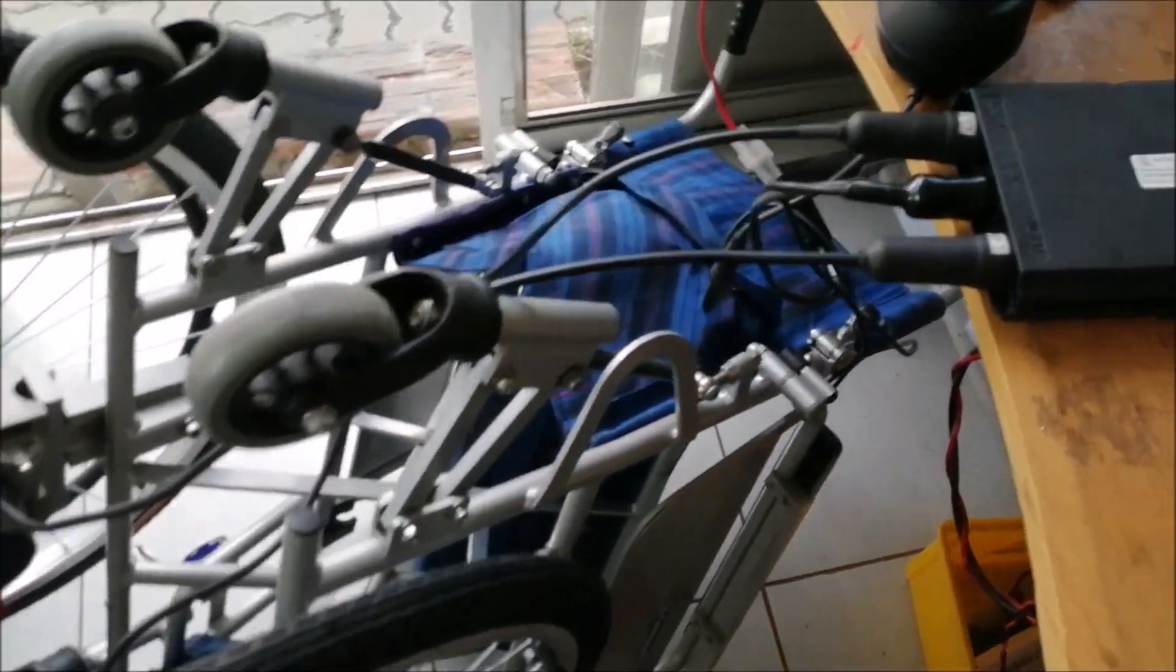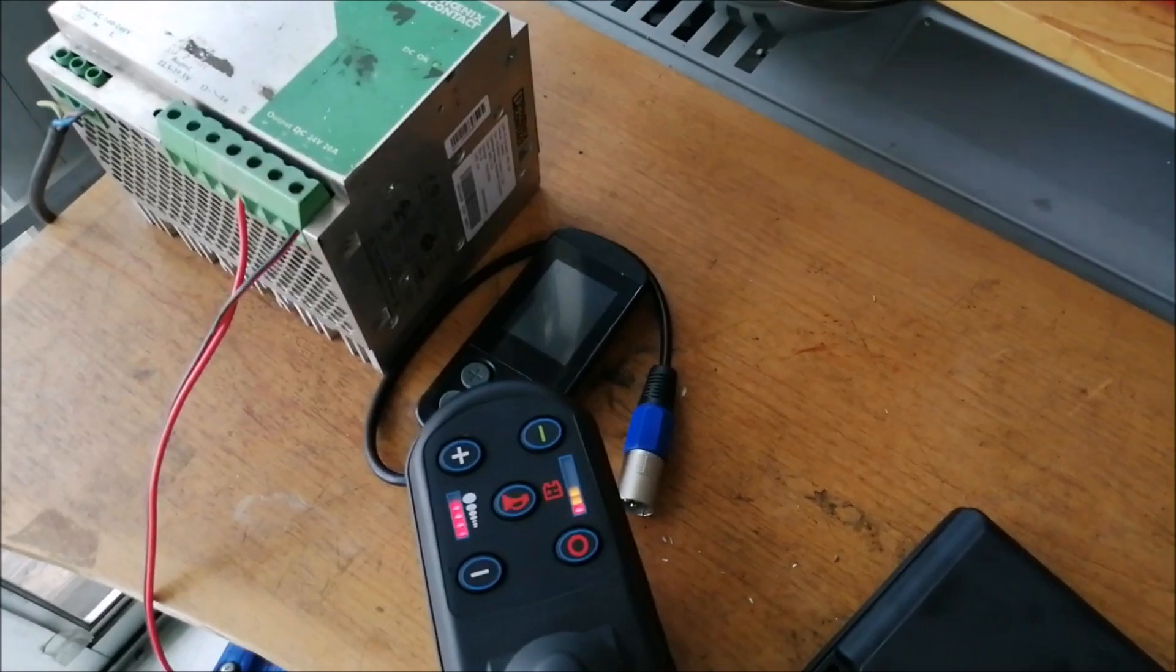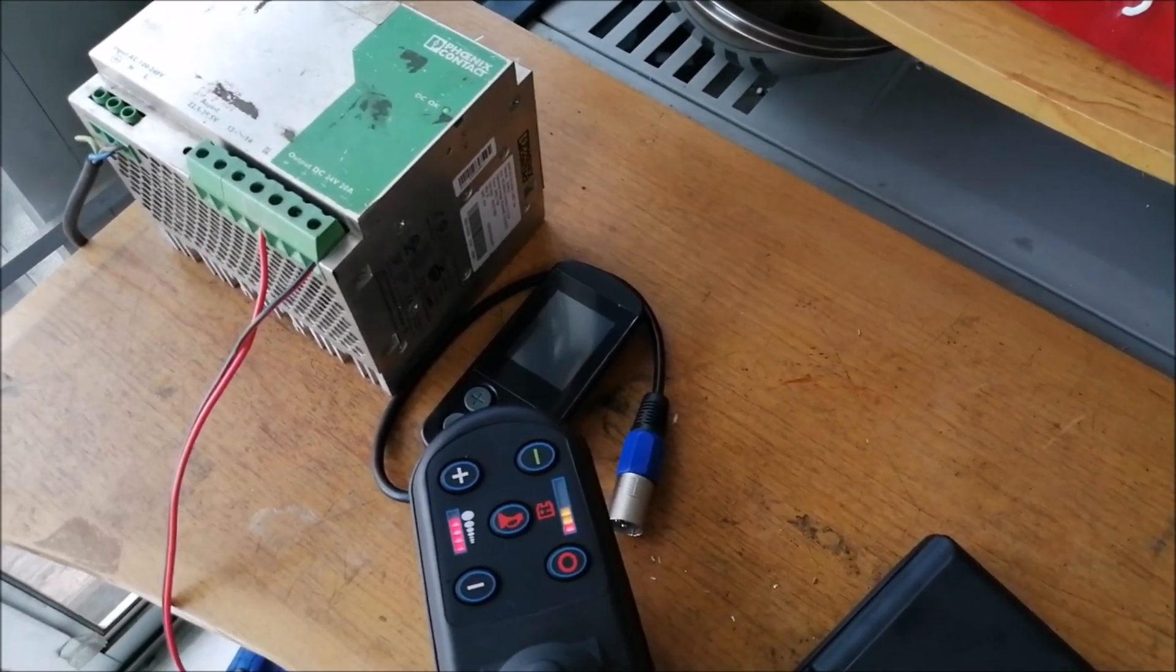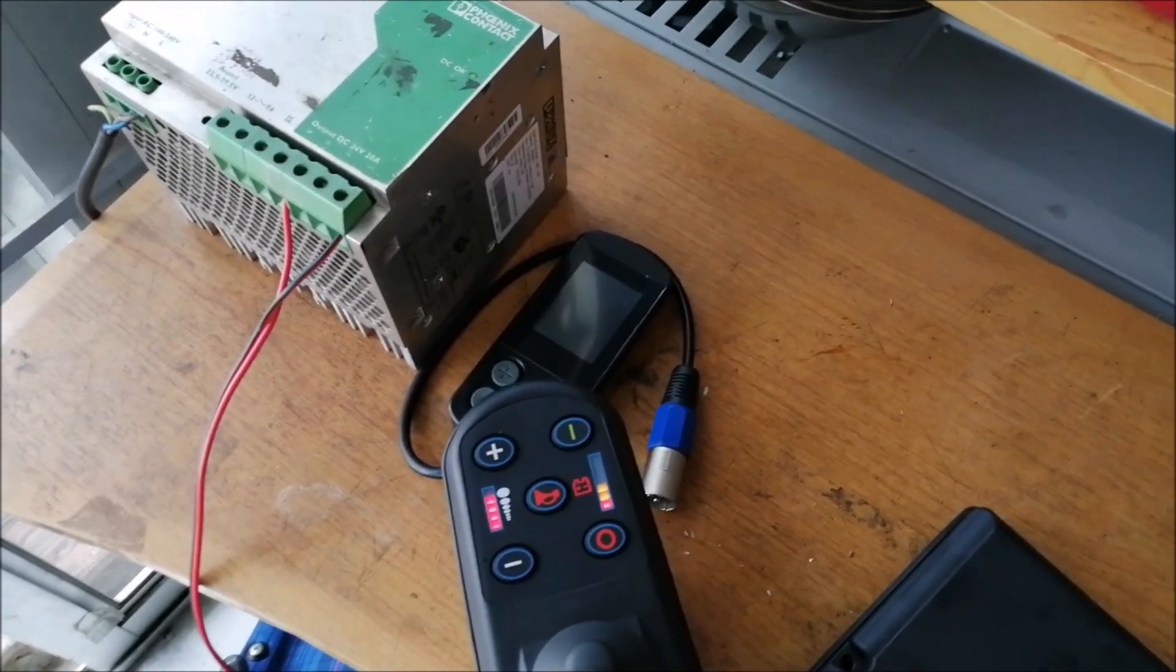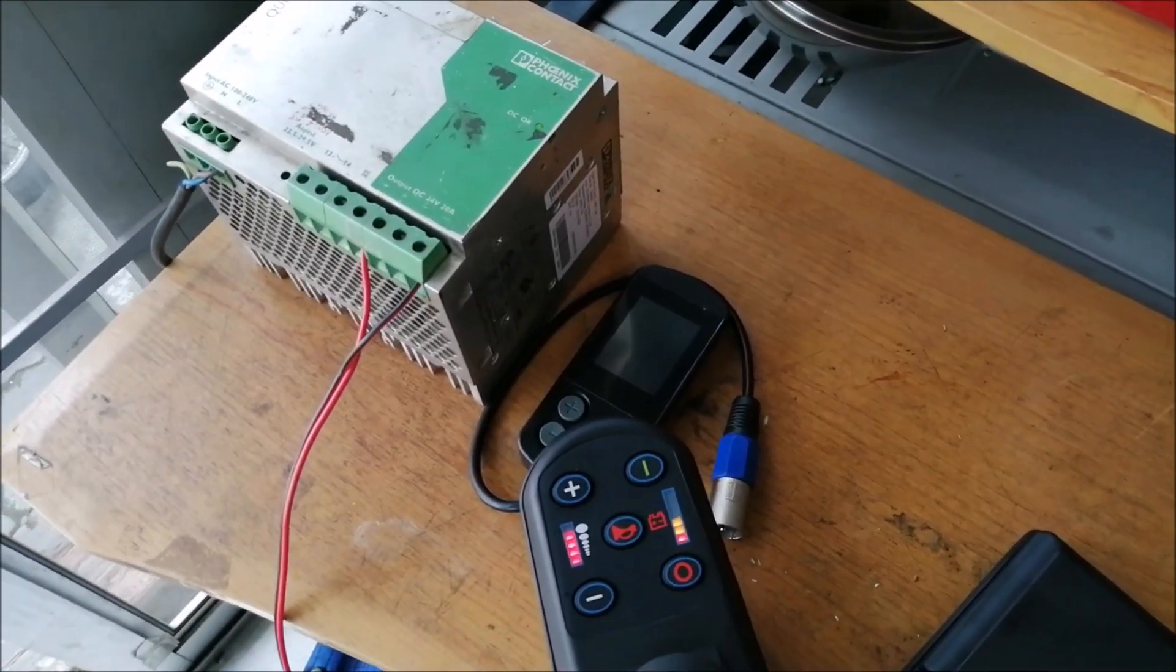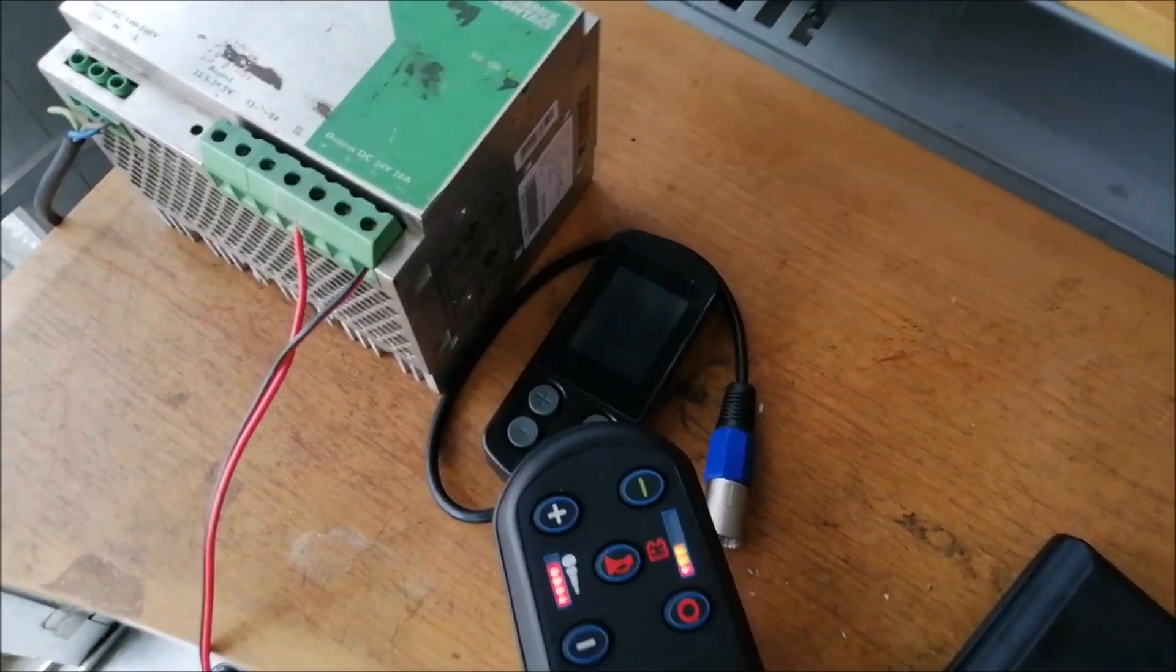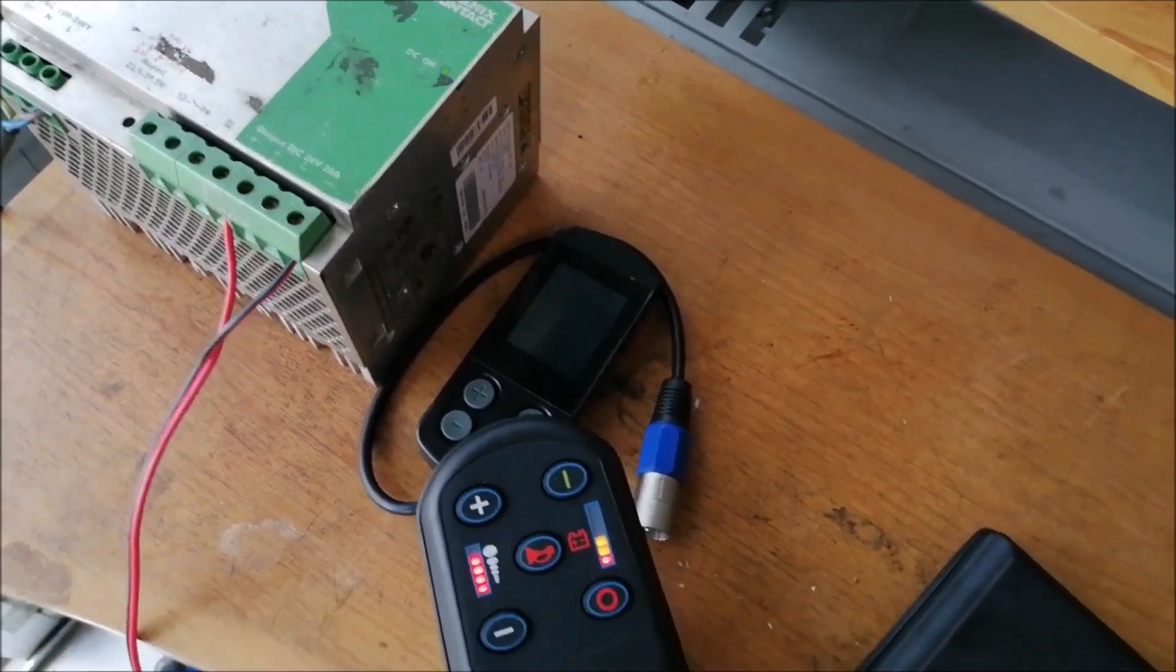The system can be easily configured to meet the requirements of the customer: wheel direction, deceleration, acceleration, all the fine tuning you can make with this programming terminal.